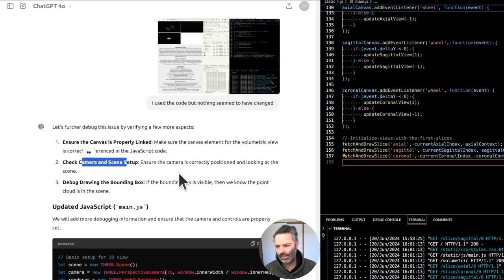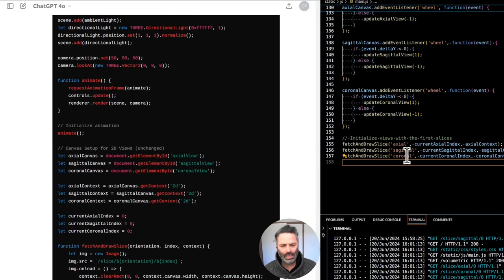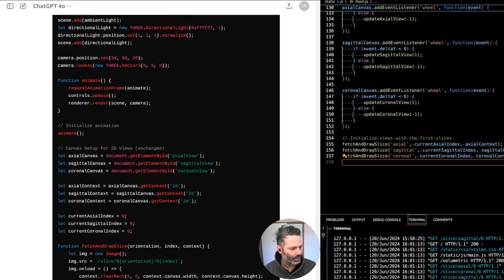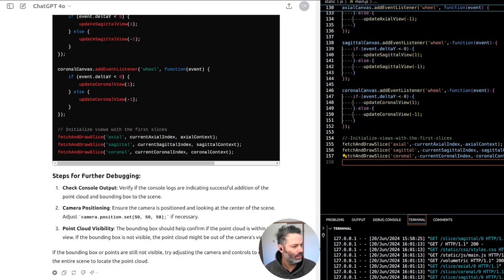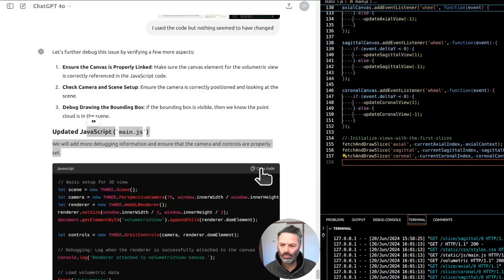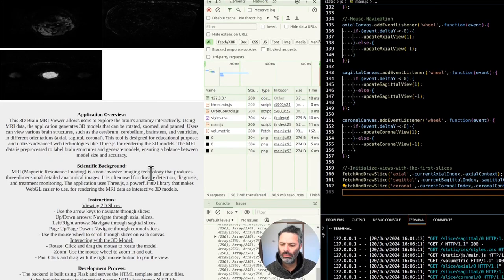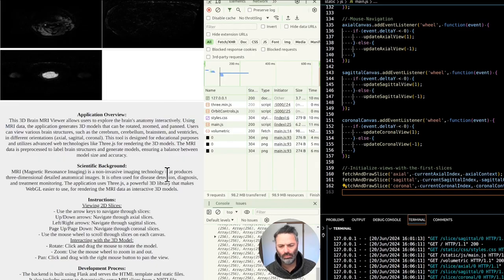The canvas needs to be properly linked — make sure the canvas is correctly referenced. Check camera and scene setup, debug the drawing. It keeps updating code but sometimes it's being lazy and not actually changing anything. It wasn't doing things like that before. Let's further debug: ensure the canvas element for the volumetric view is correctly referenced in JavaScript, check camera is correctly positioned, and debug drawing the bounding box — if the bounding box is visible then the point cloud is in the scene.